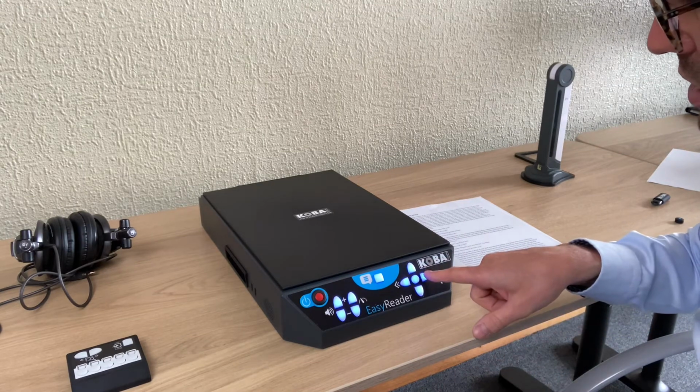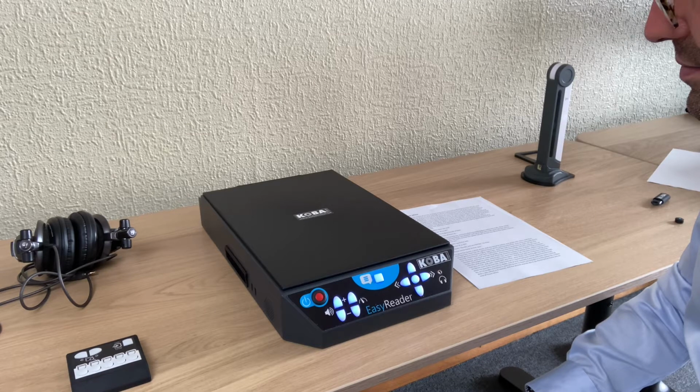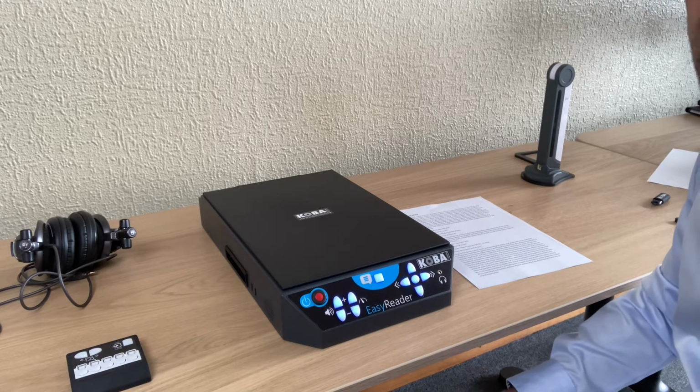Sentence by sentence. This is the previous sentence. Usually I try to blot out other people's mobile phone conversations when I'm on a train, but there was something intriguing about this one. And the machine stops after reading the sentence.